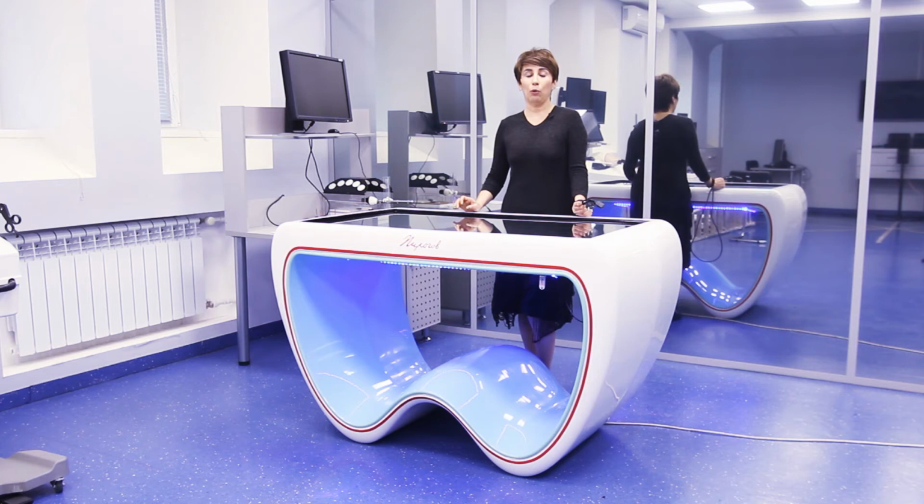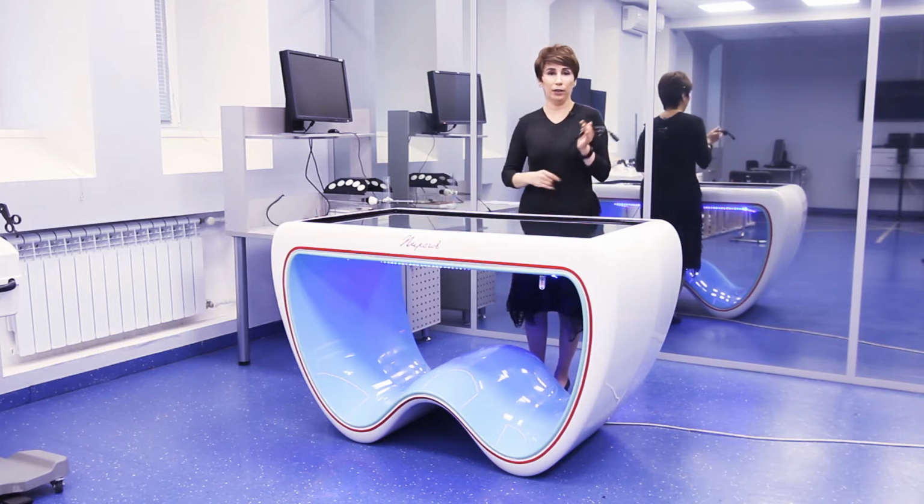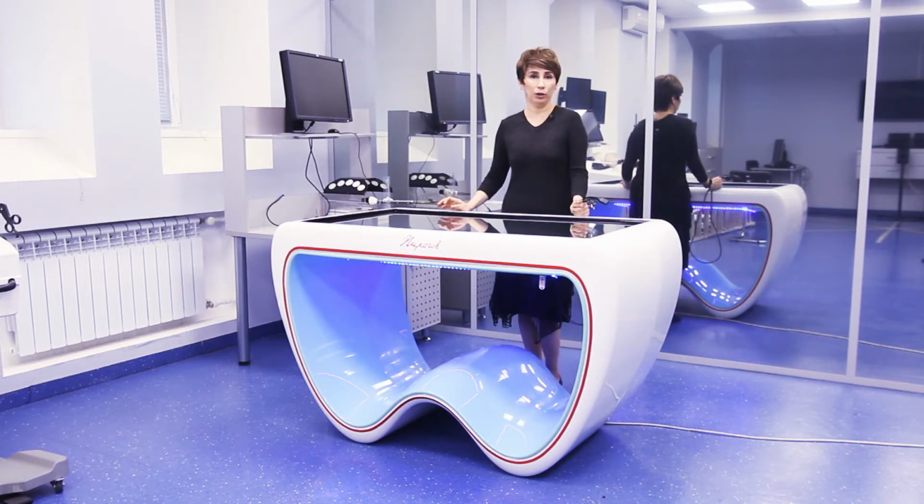Dear colleagues, I would like to present the Pirogov Interactive Anatomy table, and we prepared this video for our clients and partners. Our table consists of the physical table and the cable. I mean that this ordinary cable is connected between power connection.